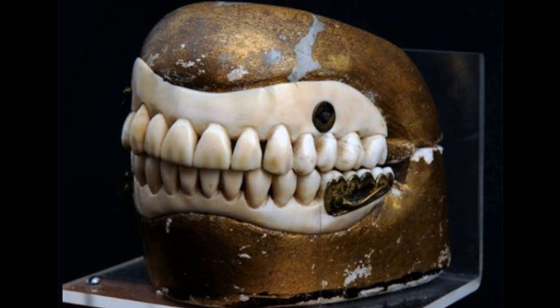Dentures — full upper and lower dentures on gold bases commendably fitted with mineral tube teeth. The maxillary are crudely fashioned from the osteodentine of the walrus. This set had obviously been inserted unduly soon after the extraction of the natural teeth. Constructed in 1851 by A.S. Young, Glasgow, and repaired in 1852. At one time, it was more or less customary for practitioners to punch their initials and the year of construction on the metal bases of dentures, as can be seen here.